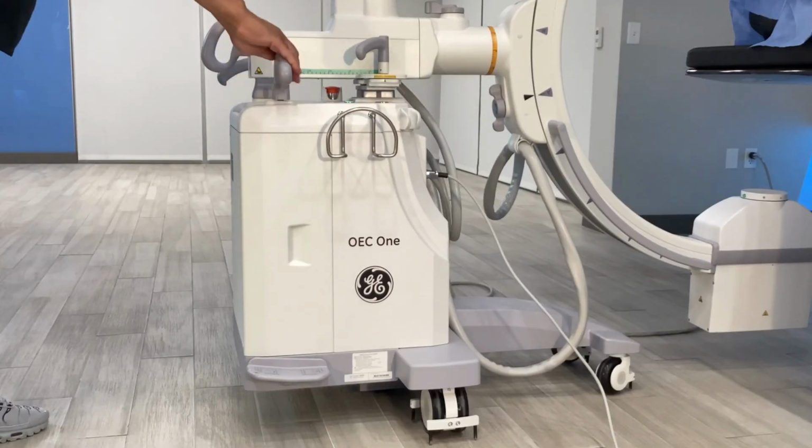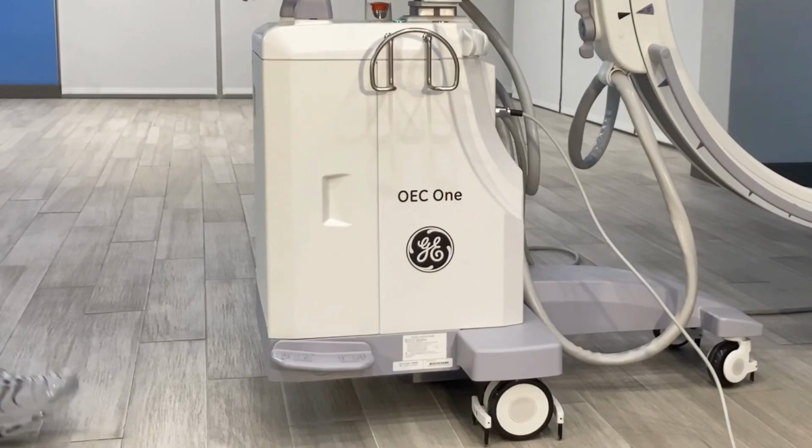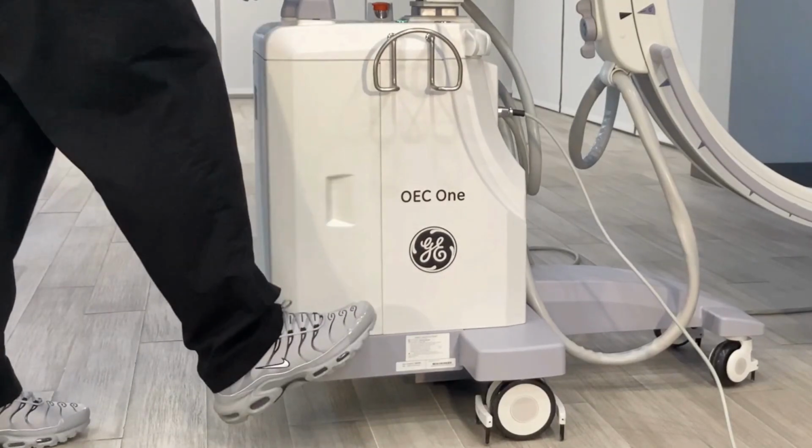Turn wheels into desired position. Press the brake pedal to the brake position to lock the rear steering wheel. Please note, the right steering handle will not turn when wheels are locked.